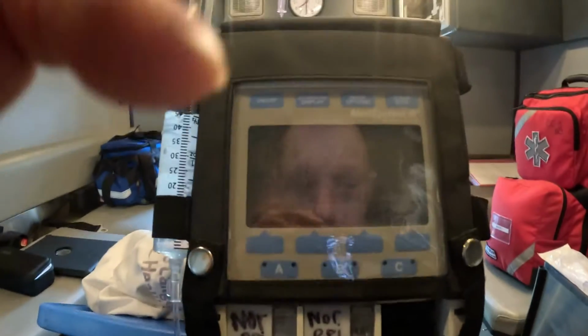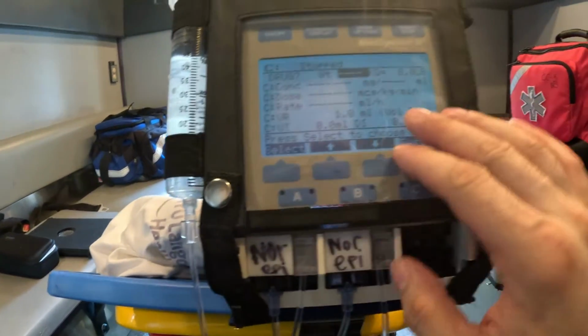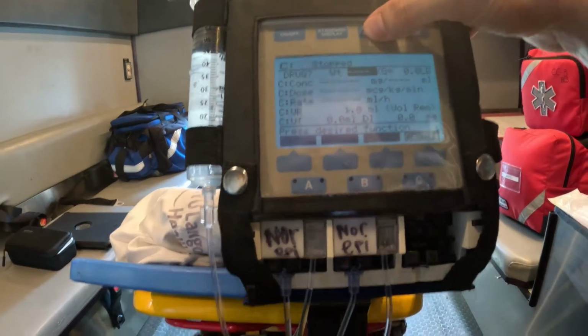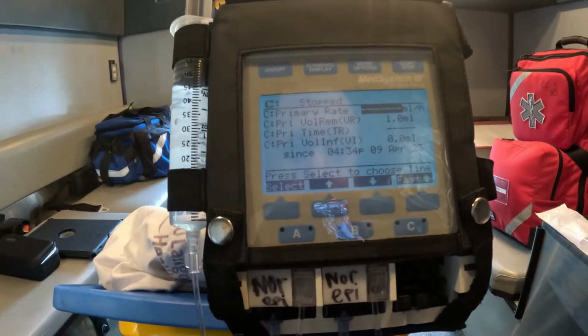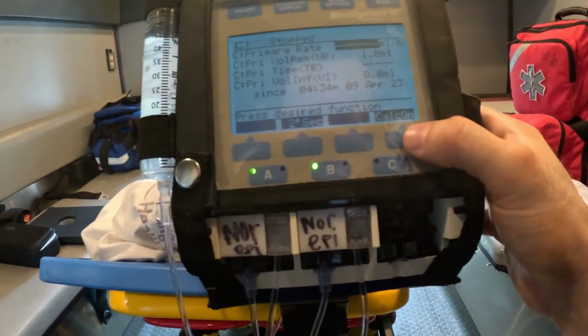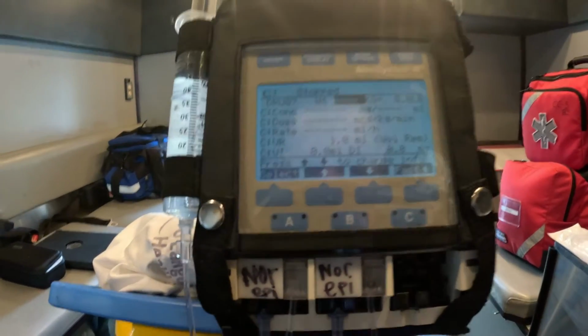So as I was showing you, you're going to click channel C, and if this was up here, the way you would go to this is more options. So it says calc off. We're going to turn this on to show you. So channel C, more options, calc on. So now we are in dose rate calculator, exactly where we want to be. All right, patient's weight.